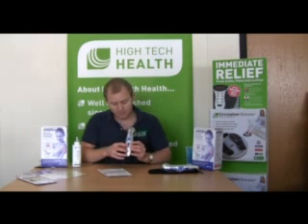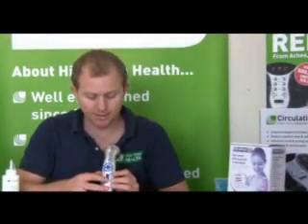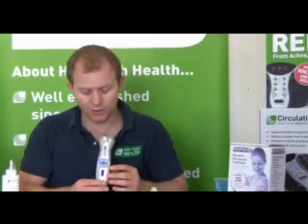Here's the main device — it's got a long cord, well over 2 metres, powered off the mains. When you turn it on, you have various settings depending on the ailment. You've got 5, 10, or 15 minutes, which depends on the size of the area you're treating. And then low, medium, and high — that controls what we call the duty cycle.